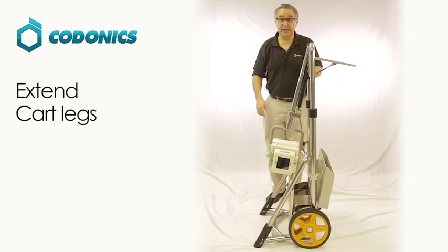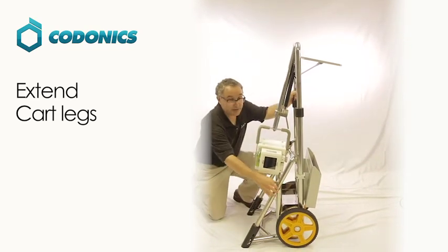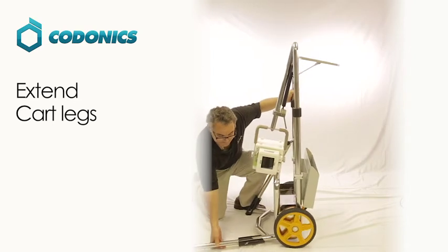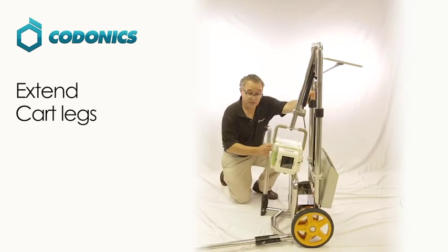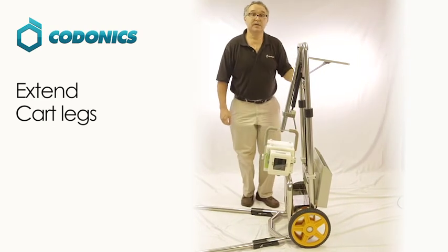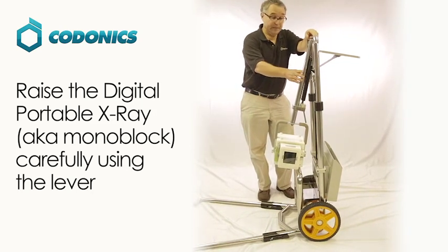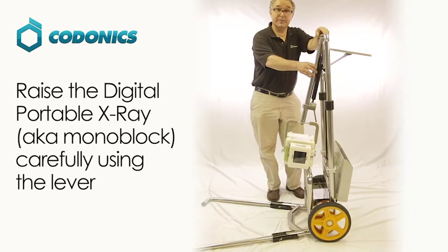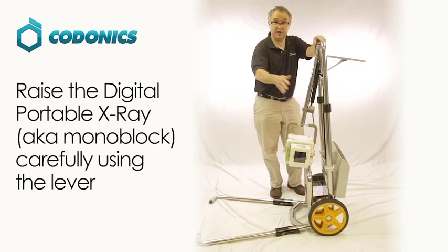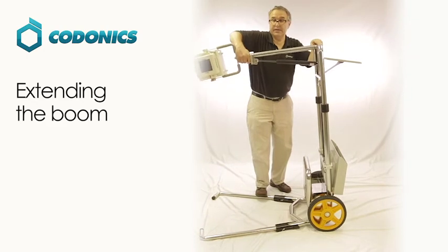The next step is to extend the legs of the cart out. They are spring-loaded, so as you take the leg out, extend it out and then let it come back in. Do the same with the other leg. Now you're ready to raise up your x-ray monoblock. Be careful as you raise the arm, as there are two pneumatic cylinders that have a lot of pressure behind them. There is a lever to help you extend the arm up — lift up and slowly raise up the arm.